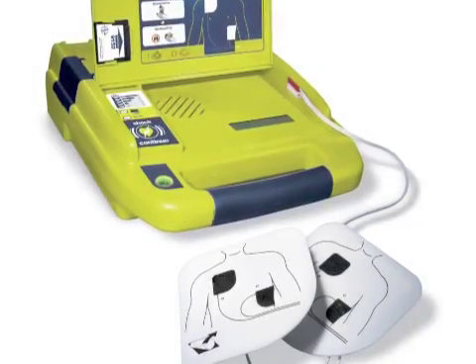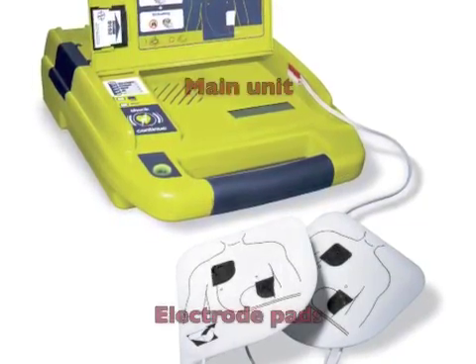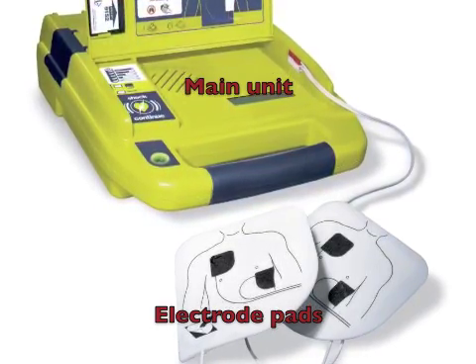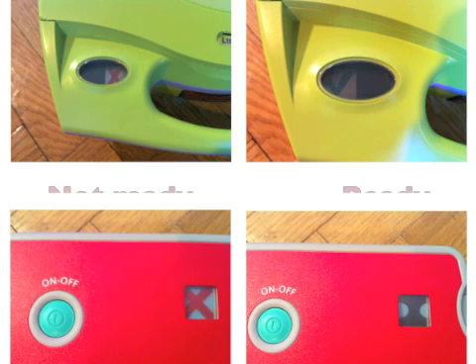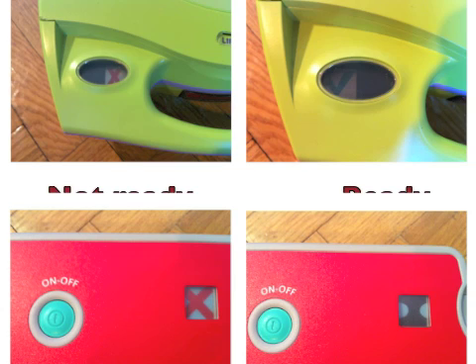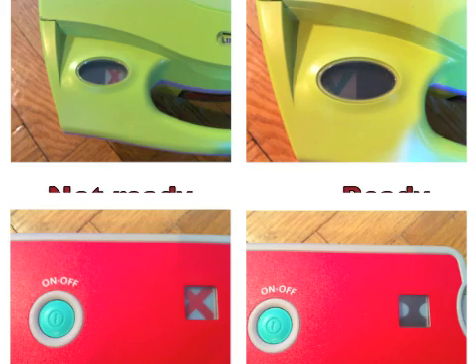Each AED basically consists of two parts: the main unit and electrode pads. Most main units have a built-in visible indicator showing that the AED is ready for use. Such an indicator is visible immediately without the need to open or turn on the AED.